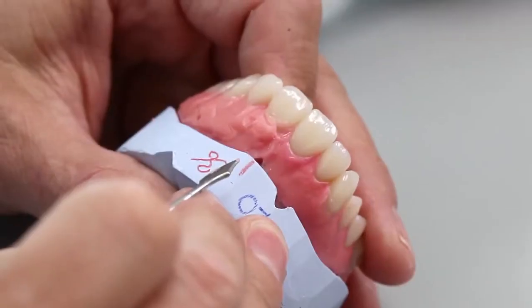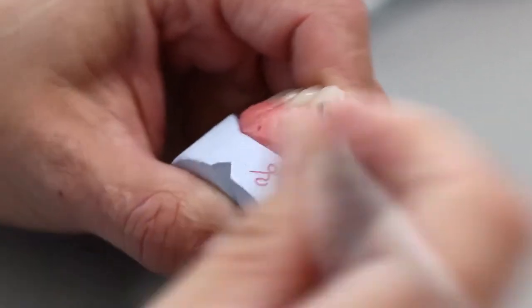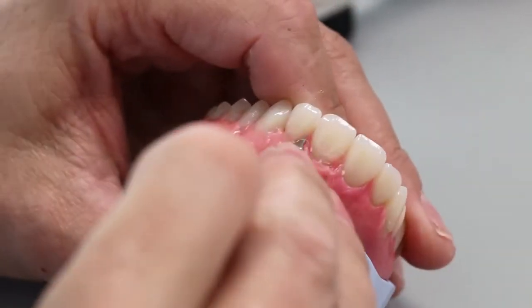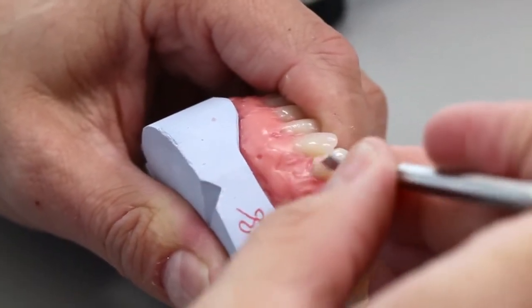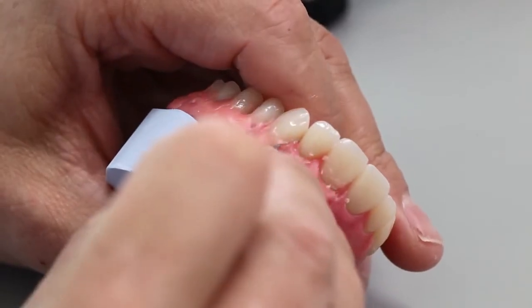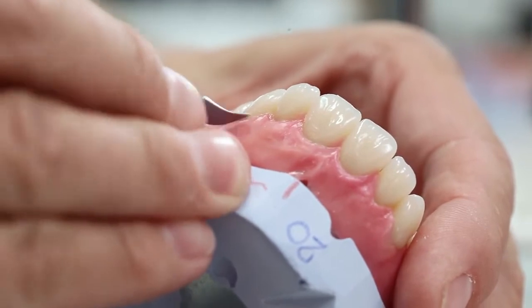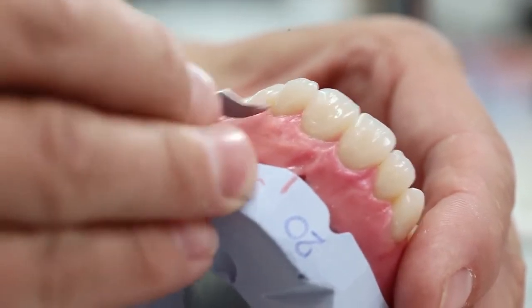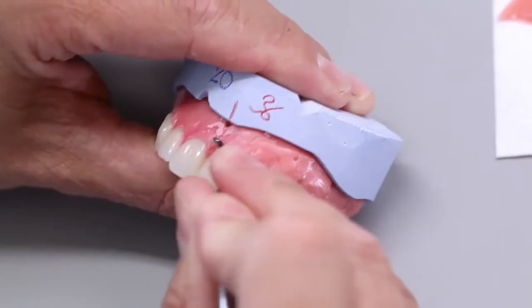The following important points have to be considered in this context. Basically, contour the gingiva in such a way that it's easy to clean and has a lifelike appearance. Too prominent contours such as balconies must be avoided. In the maxillary anterior region, the gingival margin tends to run the highest in the distal third. In contrast, the lowest point in the mandible tends to be in the center area.